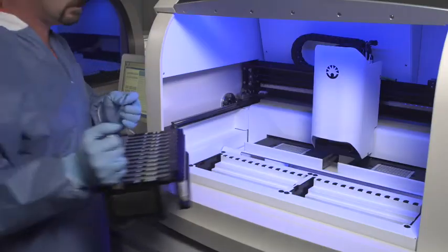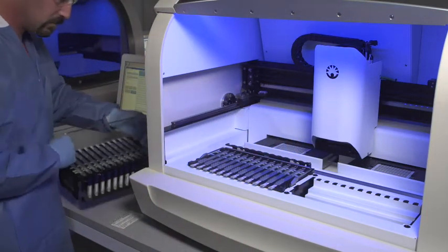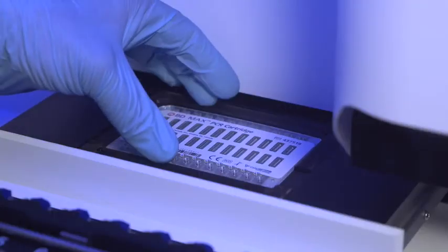BD MAX system is loaded with the BD MAX racks containing the prepared sample tubes and assembled unitized reagent strips and the PCR cartridge.